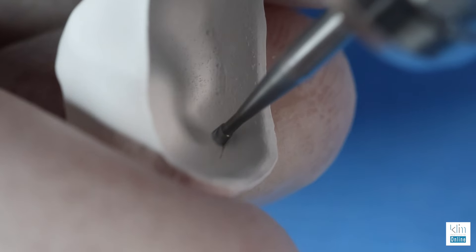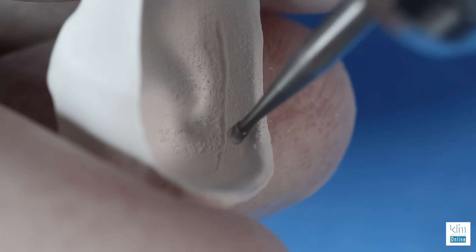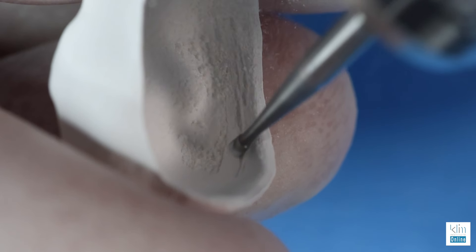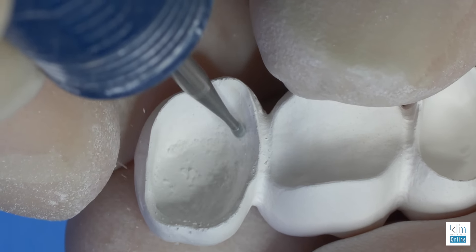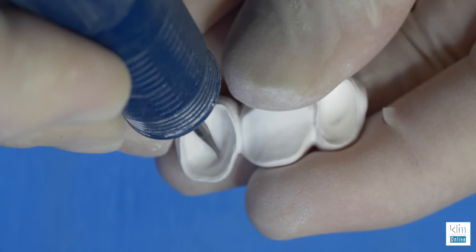So I'm not a proponent of bonding zirconia. I've done it in a few cases, but in general, I'm not. Do we have to be concerned about these restorations coming off using this approach? Particularly sandblasting internally, but before that, creating undercuts on the internal surface of the zirconia crown before you cement can add some mechanical retention. When a zirconia crown comes off, it's usually the cement on the tooth and the inside of the crown is clean. With some subtle undercuts creating mechanical retention, I have seen very good success for over a decade keeping zirconia crowns in place.